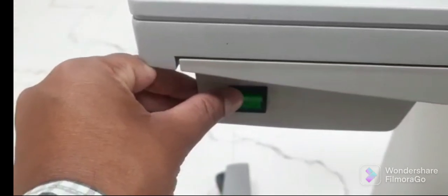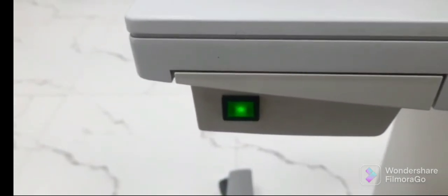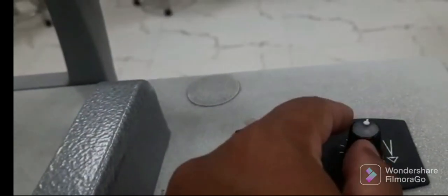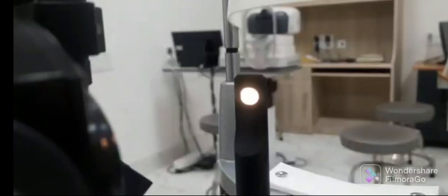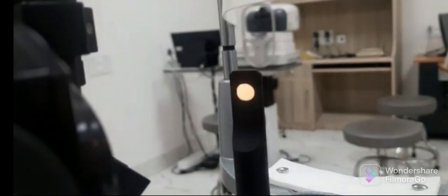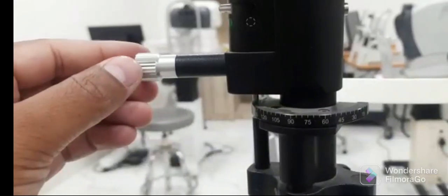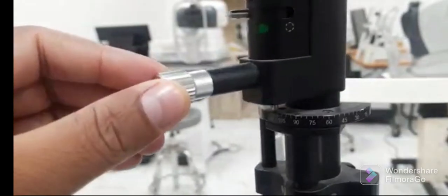Then switch on the slit lamp using this bottom button. The intensity of light can be regulated by this dial and should be set to moderate. Now it is adjusted to moderate intensity.